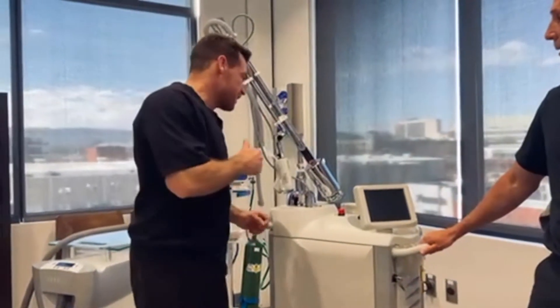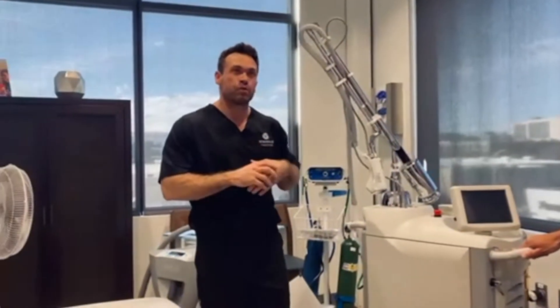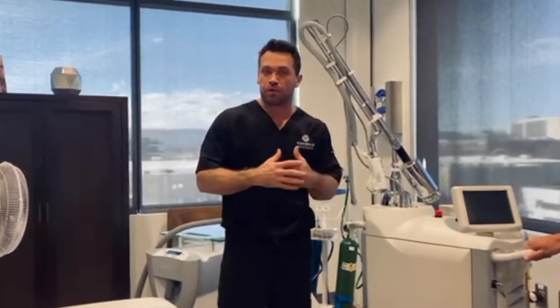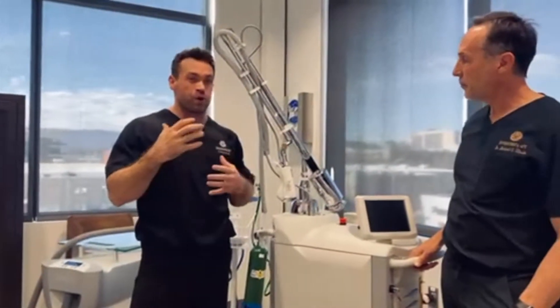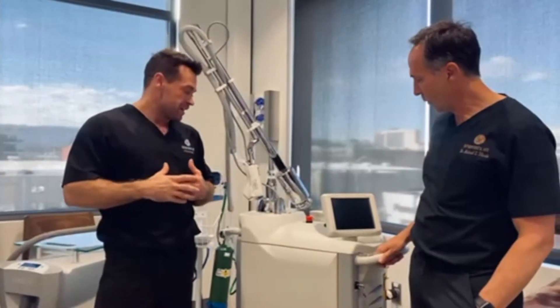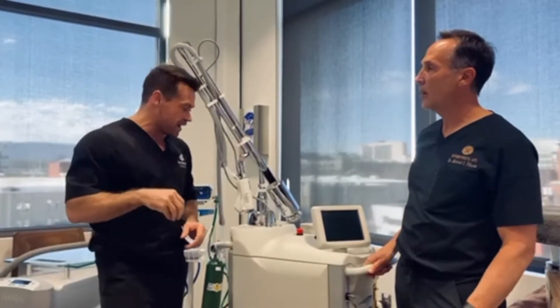In particular, we want to talk about the HALO functionality. Over the last three, four, five years, the HALO really was a game changer in the market in so many ways, and Sciton was known for this — they were really the first in the market to bring a lot of things to light. This HALO was extraordinary. A lot of us just think about lasers and think about just the laser beam coming out of it.